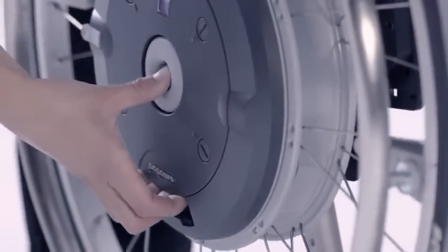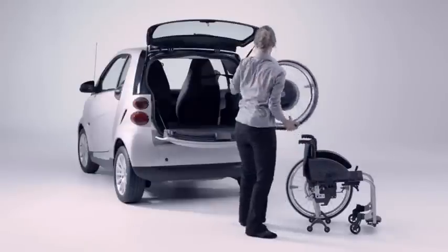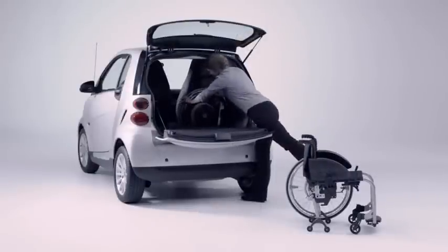The wheels are removed via a quick release axle, making them easy to transport in the car.